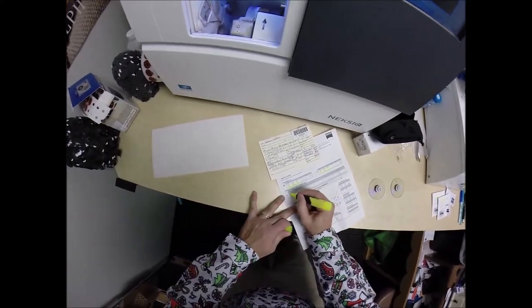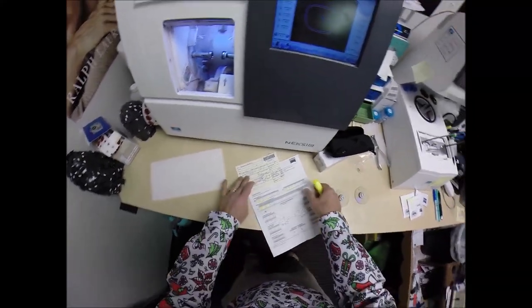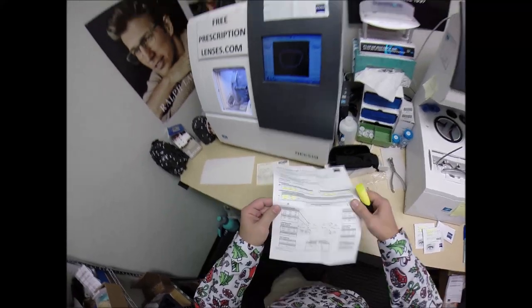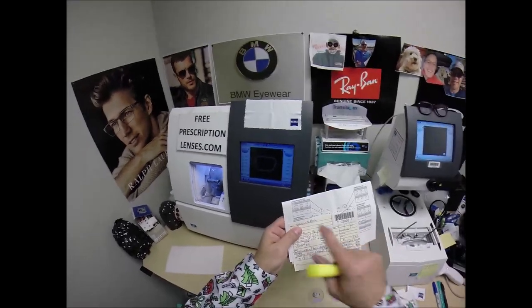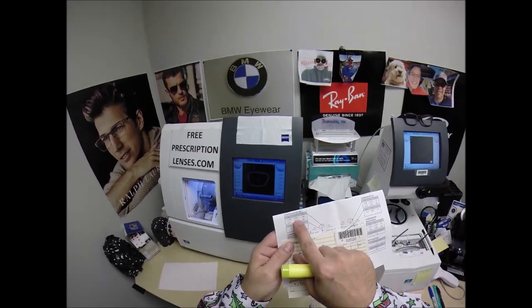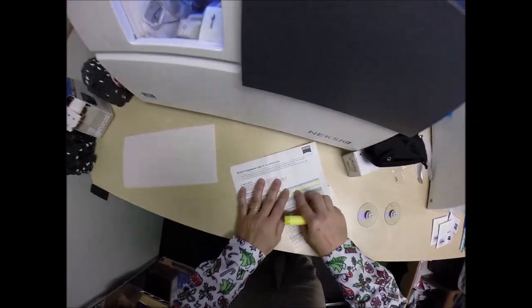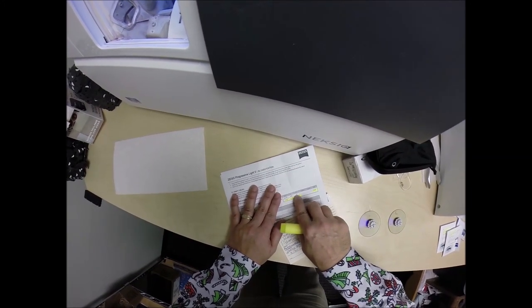Because these are digital lenses, it gives me my PD, the height at which I place the progressive lens, the base curve, my bifocal strength, and the progressive power for both eyes. The freeform generator prepares them — plus one minus a quarter at 137 becomes plus 0.99, minus 0.26 at 135. You can do things in plus cylinder or minus cylinder. Years ago they put the astigmatism correction on the front surface as plus cylinder; now it's on the back of the lens as minus cylinder.